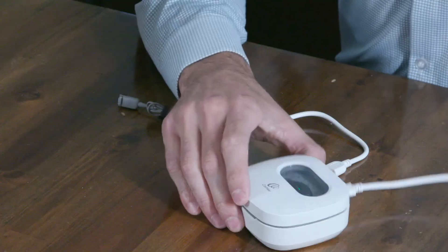The home charger has two purposes: recharging and drying your processor to ensure it's operating at peak efficiency. The flashing light lets you know that it's charging. The process takes about four and a half hours.